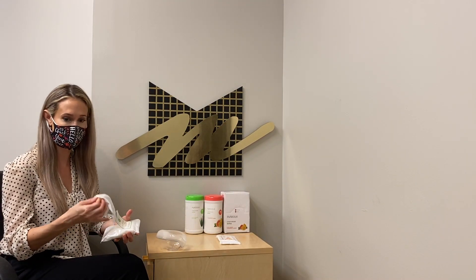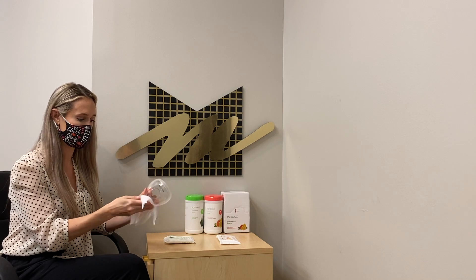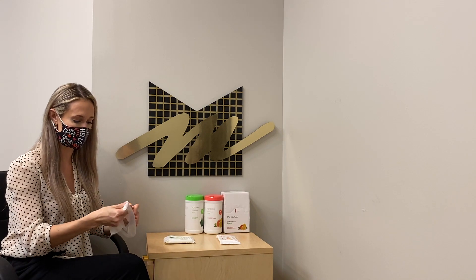I'm going to demonstrate how to clean your mask. Take one of the sheets and wipe all around and inside. One wipe will be good for the entire mask.